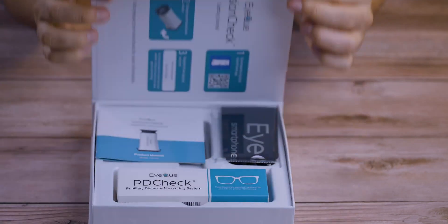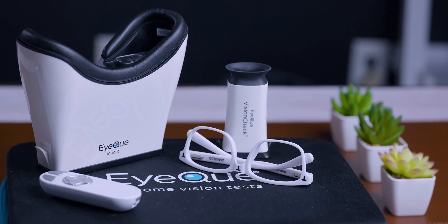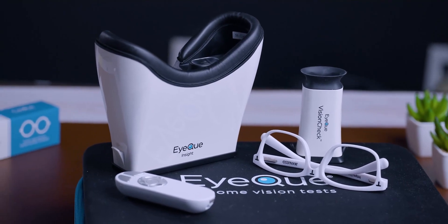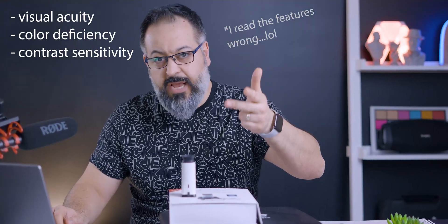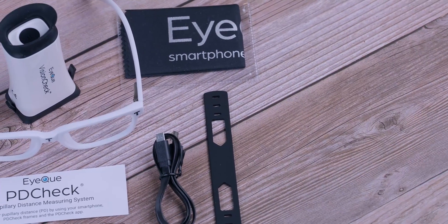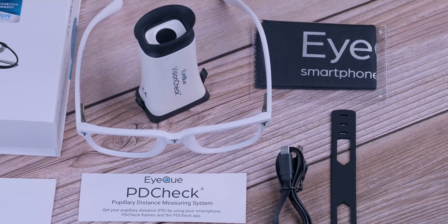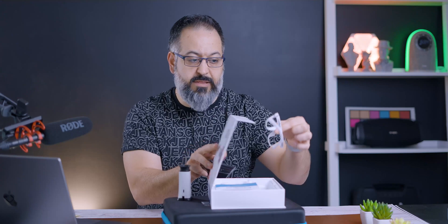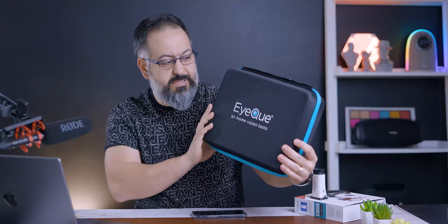This is one kit you will get — there's more stuff inside. For 90 bucks, or you can get the larger kit which includes everything in this box plus another device to help you check for 20/20. The IQ Vision Check comes with the main device itself, which you charge with a micro USB, some cleaning cloth, a strap to secure it to your phone. I love the carrying case that this thing comes with.